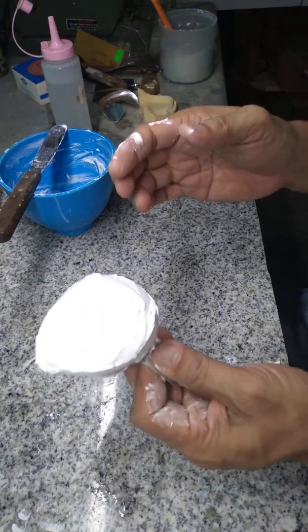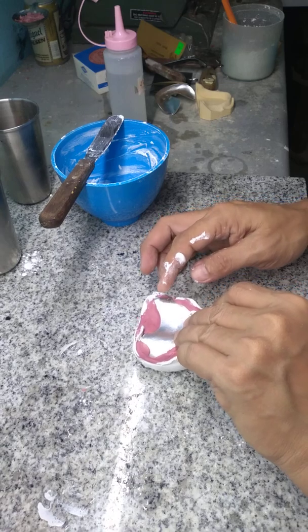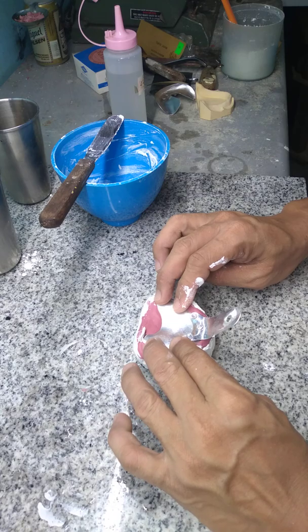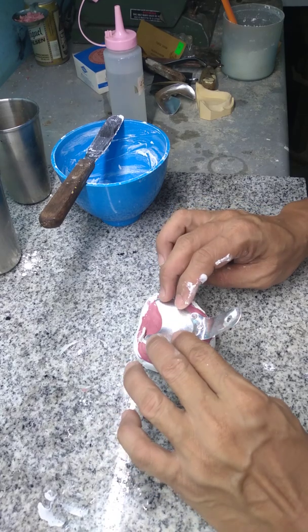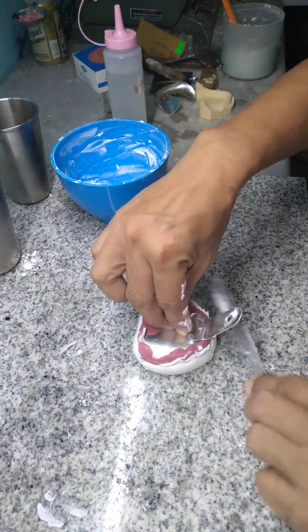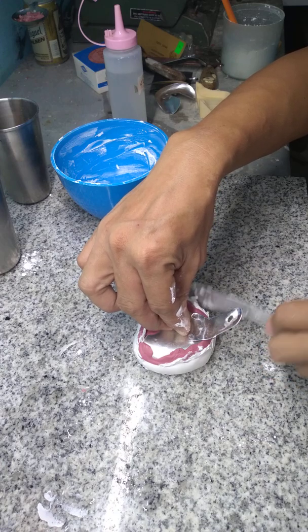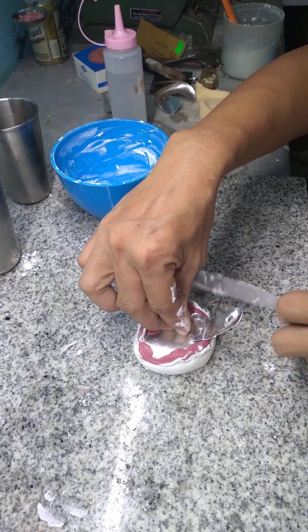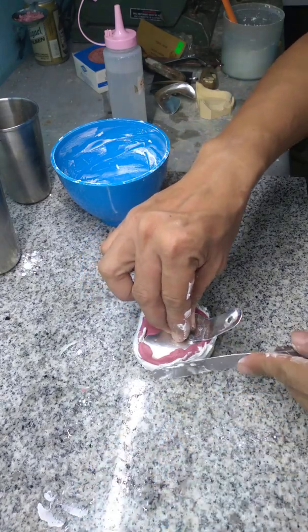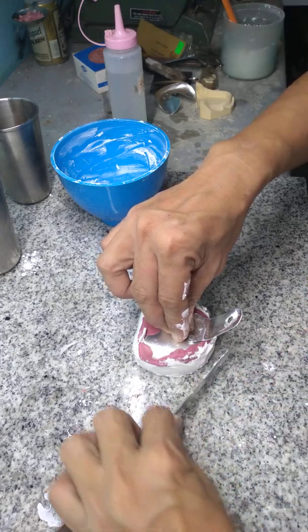When initial set is done, you can put your tray upside down so you have a flat surface. Then press and flatten the sides. For most of you who don't have a trimmer at home, minimal reduction is all you need to do — that's because you'll have a flat base and flat sides for your cast.